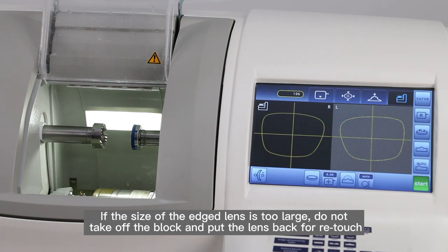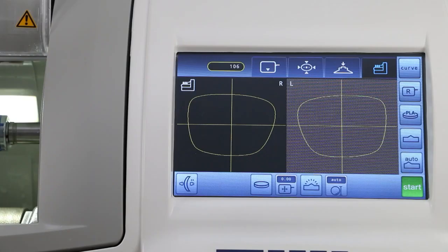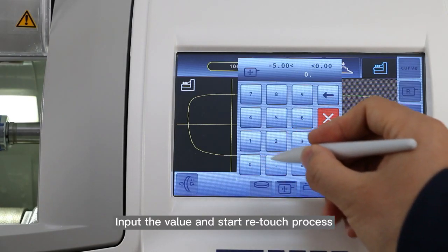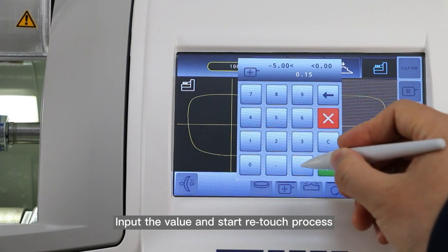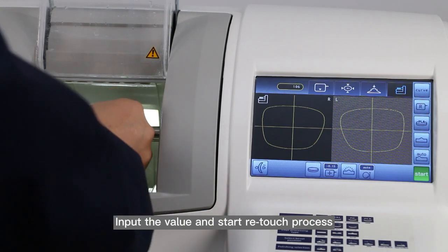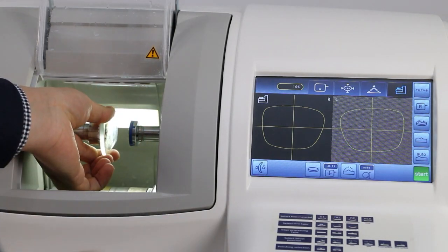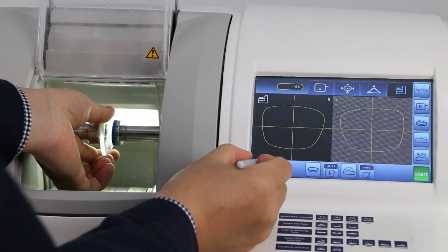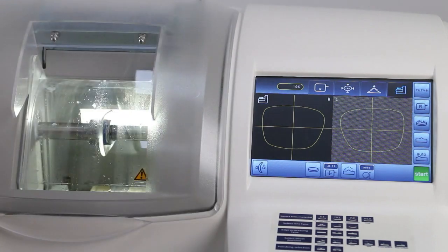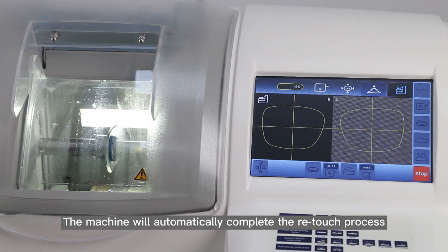If the size of the edged lens is too large, do not take off the block and put the lens back for retouch. Press the retouch button on the screen, input the value, and start the retouch process. The machine will automatically complete the retouch process.